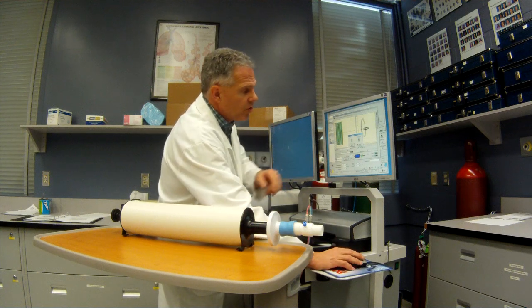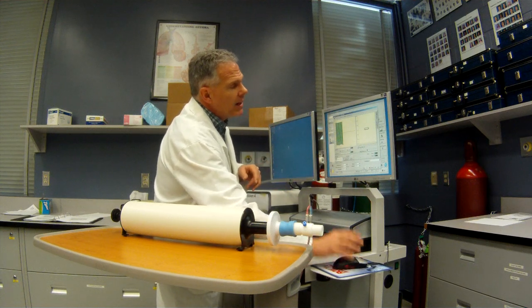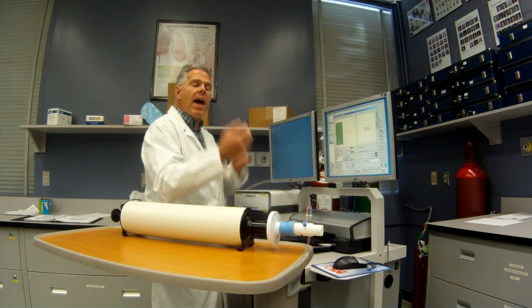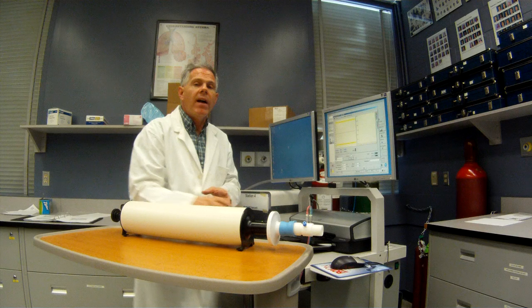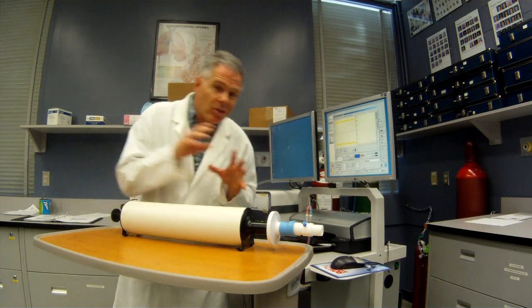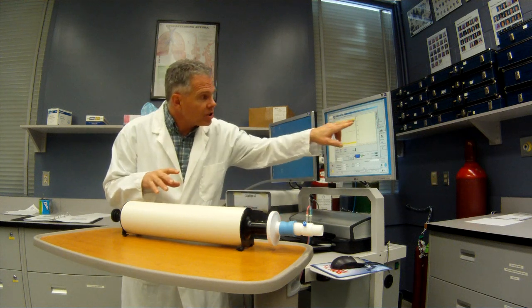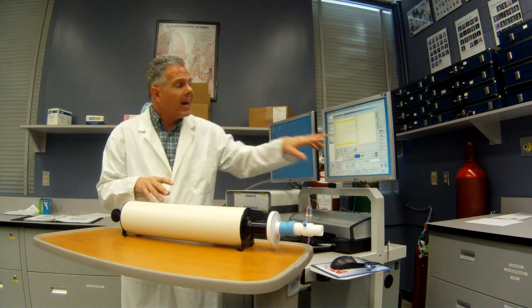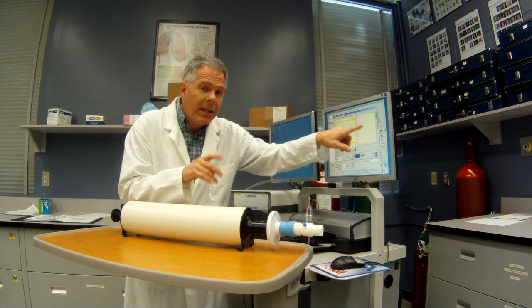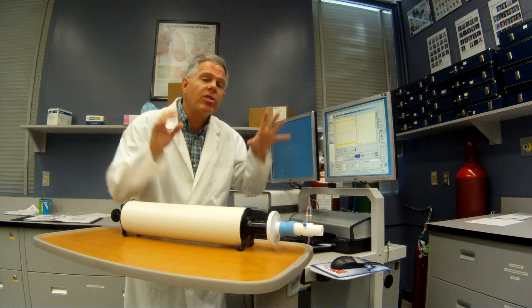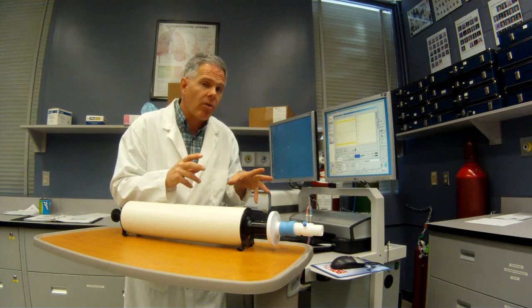So we've got two green lights. So what this shows me is that I've done a high and a low flow calibration. But now what I've got to do is verify to make sure that it's working effectively. So it switches over now and it shows me just these yellow bars. And now I have to get my flow rate at low, medium, and high. And then it'll measure the volume to make sure that it's working correctly.